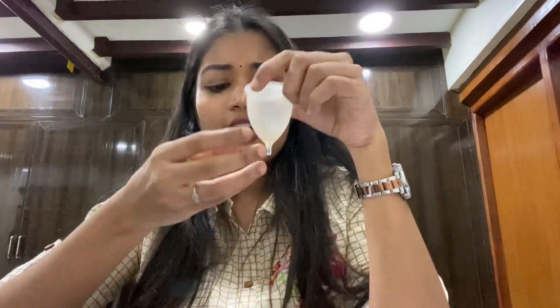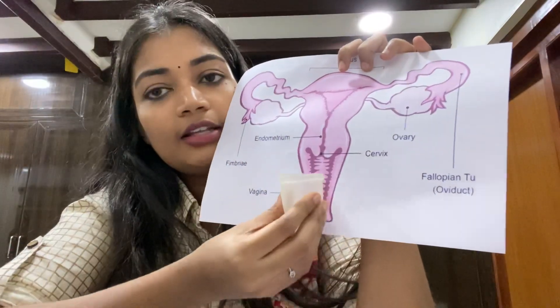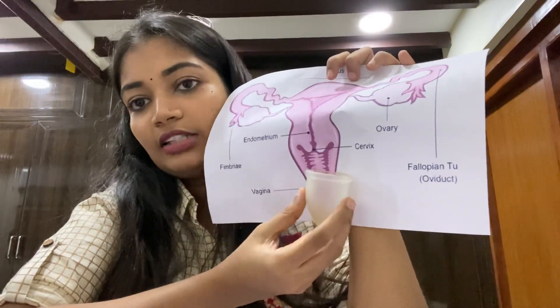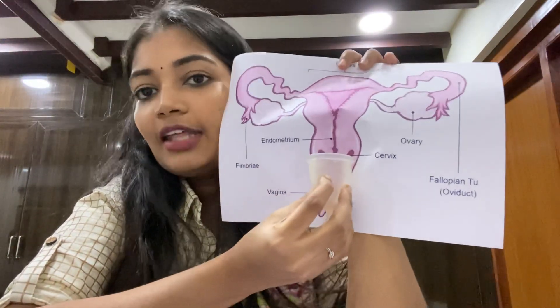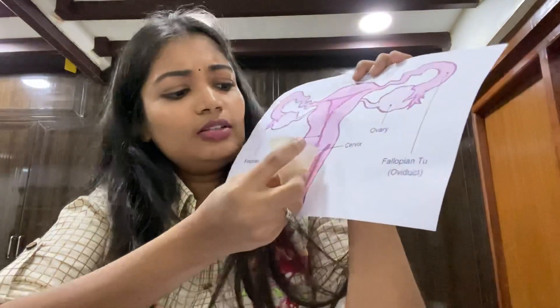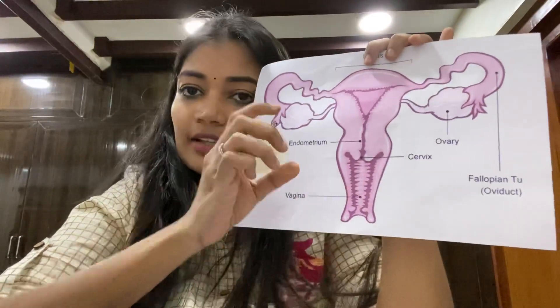For large size cups: if you have had a vaginal delivery, you can use a larger cup. You can also choose based on the position of your cervix — insert and check the length of your vaginal canal. If you have a high cervix, the cup sits very high. Choose your cup size accordingly.